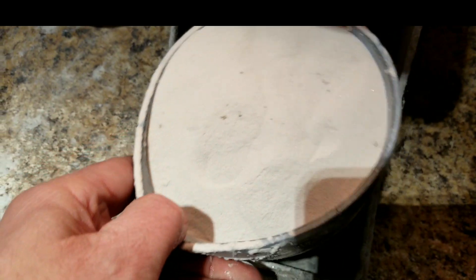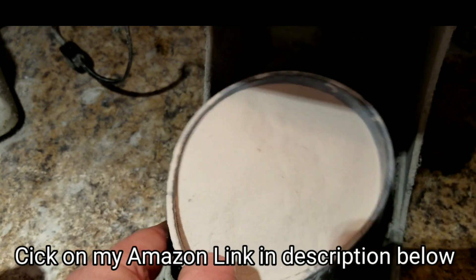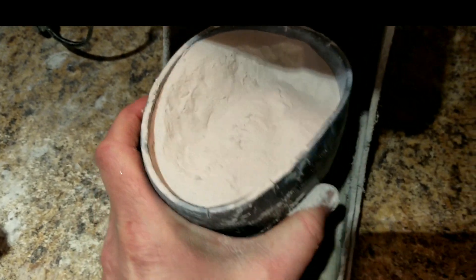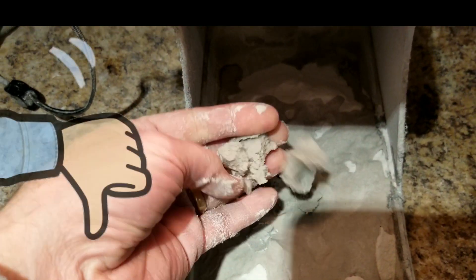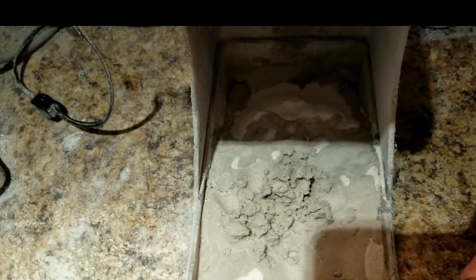Next up, I've got CL85 medium grade pumice. It's beautiful — it sticks to your hands because my hands are wet. Now you want to take nice brand new pumice, put it in your tray, load it up, add water to the pumice. You don't want it to be too soupy, but you don't want it to be too dry. Right there it's still pretty dry — I want to go a little bit soupier.